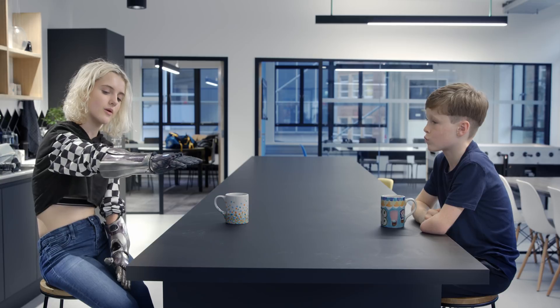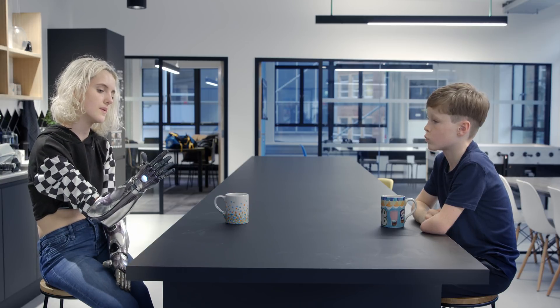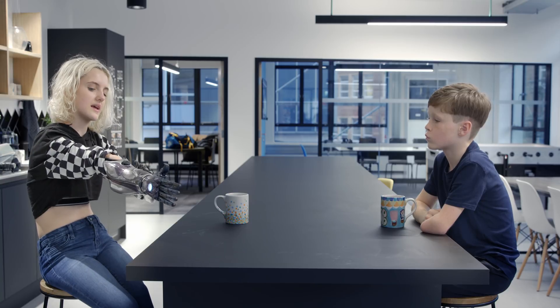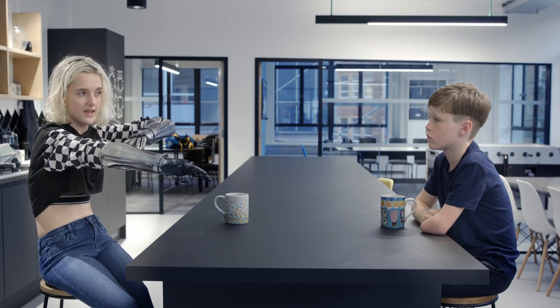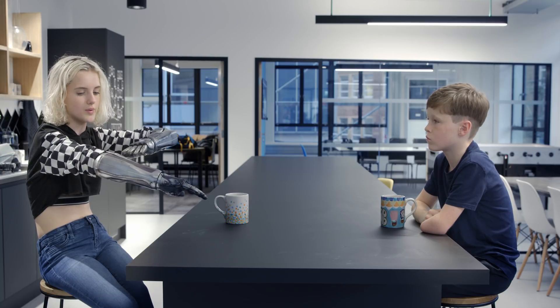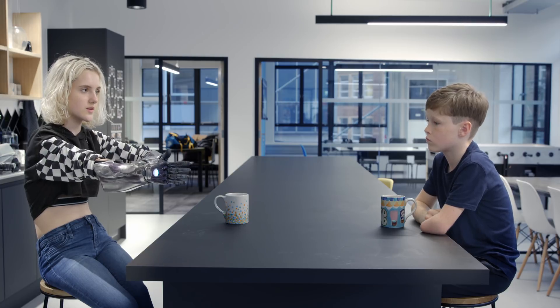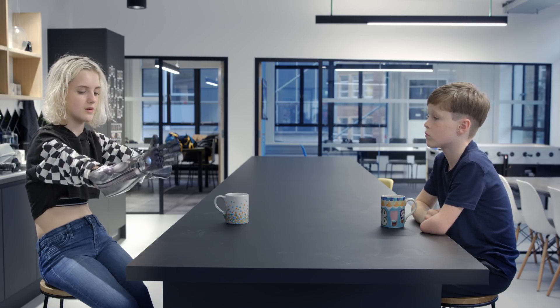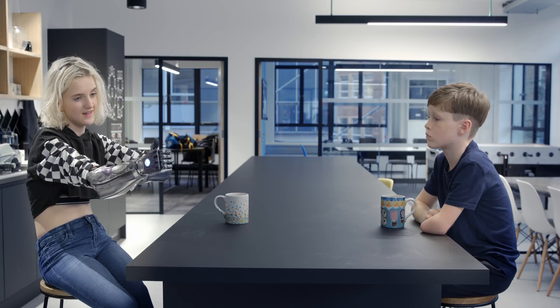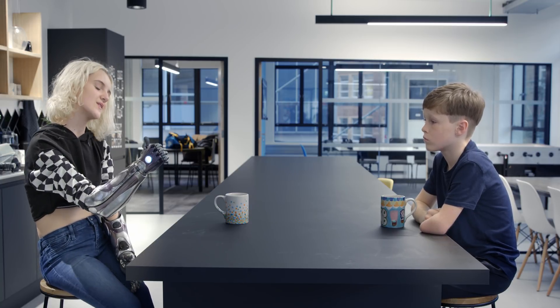Basically, how it works is through two muscles that you control in your arm. These muscle sensors are placed here and here. This one is the open sensor — if you were flexing your muscles it would register here. Whereas this one is to close it — if you were to squeeze your muscles it would brush on that sensor and make it close like so.